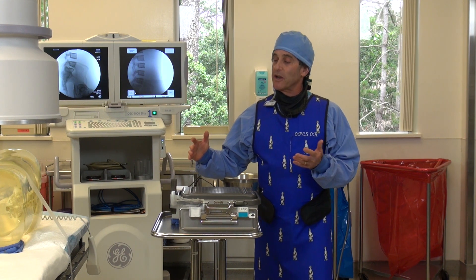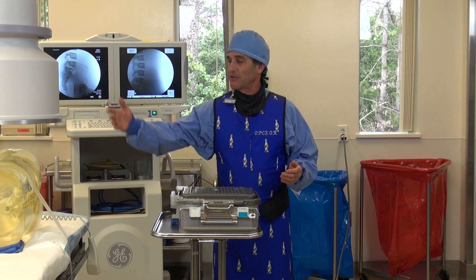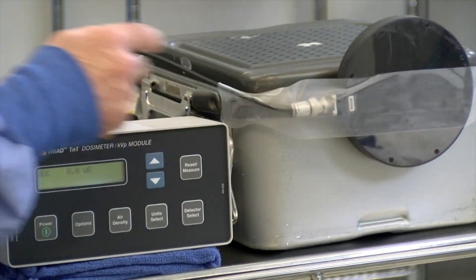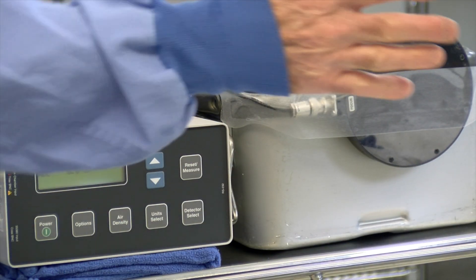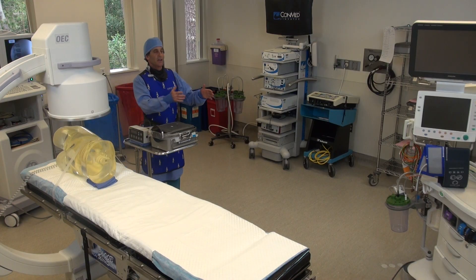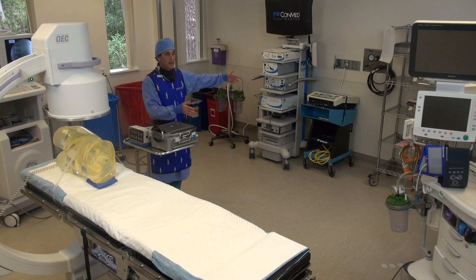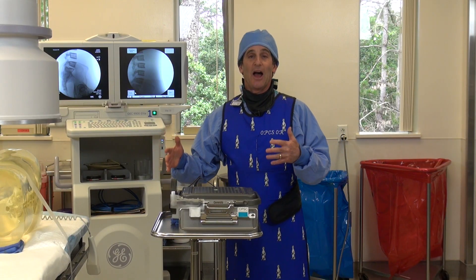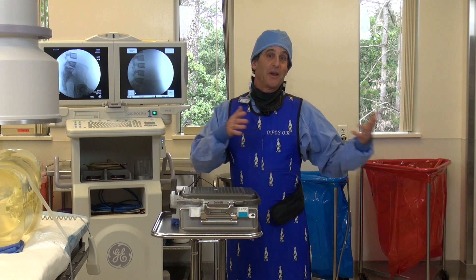So what we're going to do — as you can see the setup — we have it as a lateral lumbar. Here is the ion chamber, here's the dosimeter. And we're going to make an exposure at two feet, then move it back to four feet, and then to eight feet, to show you how the dose changes as you go from two to four to eight.